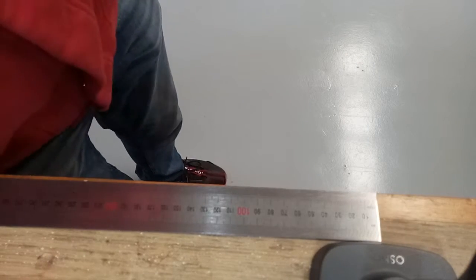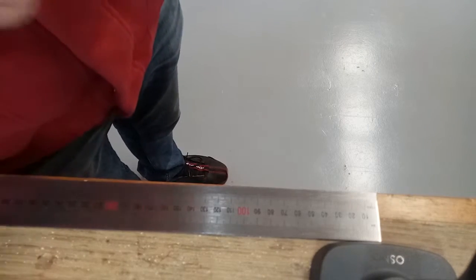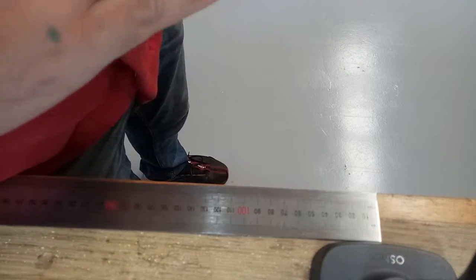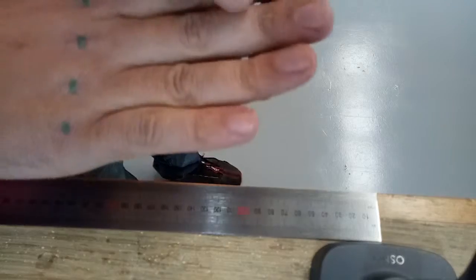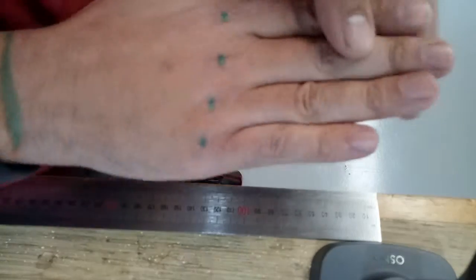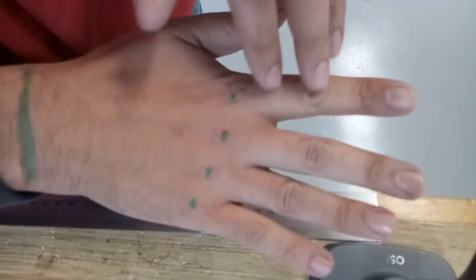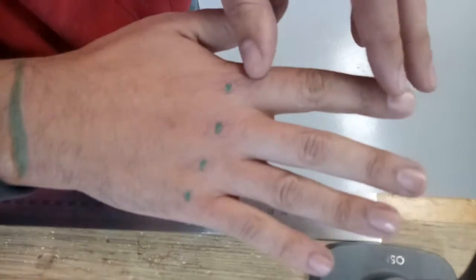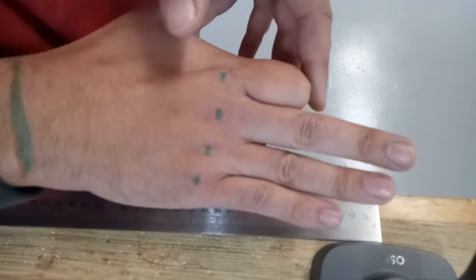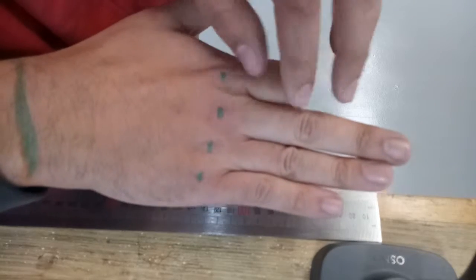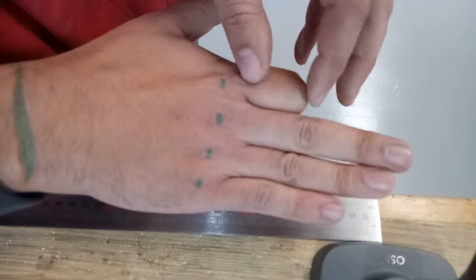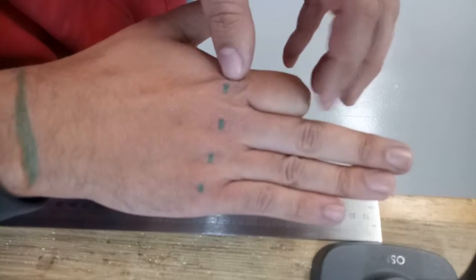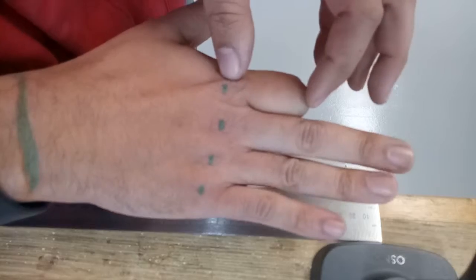This is an instructional video for the measurements that we require to make a kinetic finger. So fortunately I have all of my fingers, but for the purposes of this video I'm going to assume that I have an index finger that is severed from this knuckle.